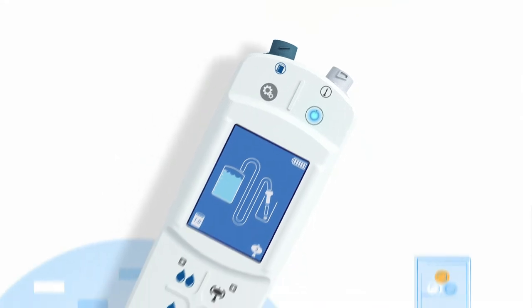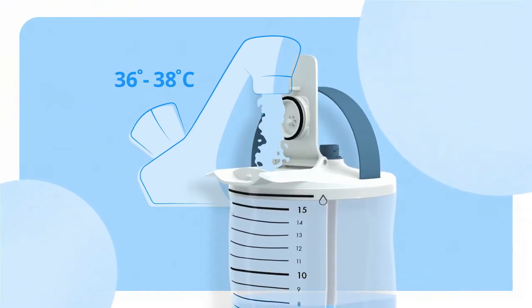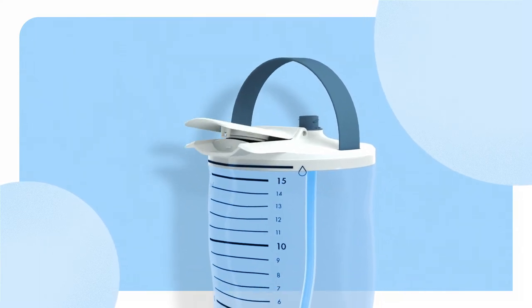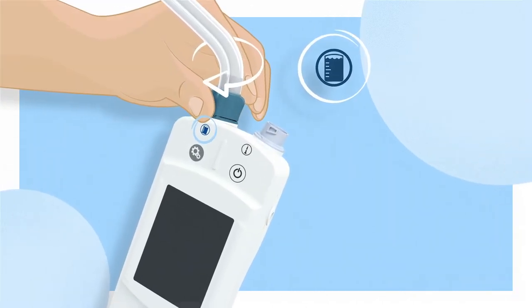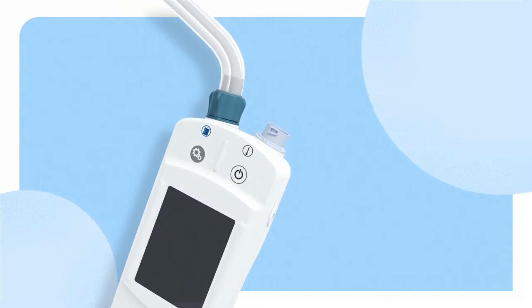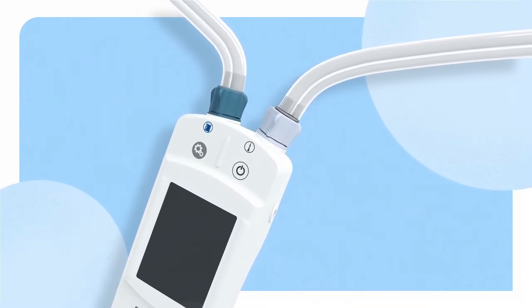Now the settings are personalized, but before you get started, you need to do some preparation. Expand and fill the water container to the upper mark with lukewarm water. Close the lid gently until you hear a click. Connect the tube with dark blue connectors to the water container and the control unit, connecting to the water container symbol. Now it is time to connect the tube between the control unit and the rectal catheter. Connect the light blue connector to the control unit, then connect the rectal catheter.